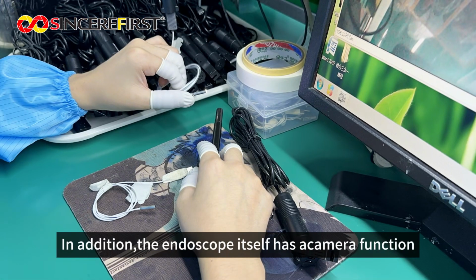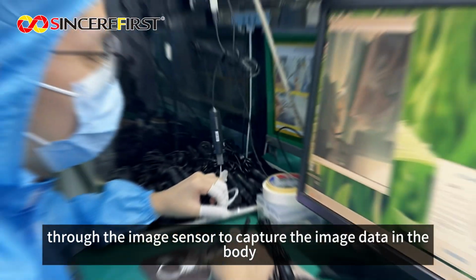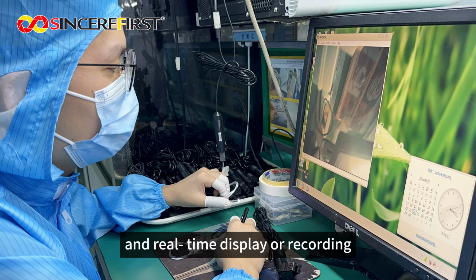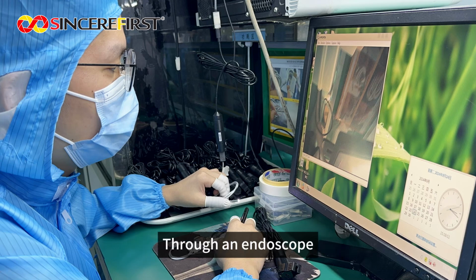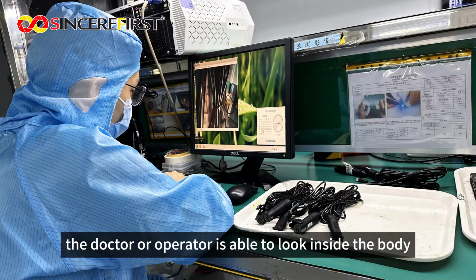In addition, the endoscope itself has a camera function through the image sensor to capture the image data in the body, and real-time display or recording through an endoscope. The doctor or operator is able to look inside the body.